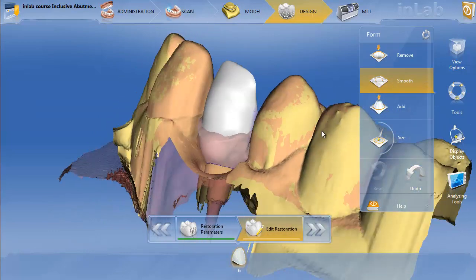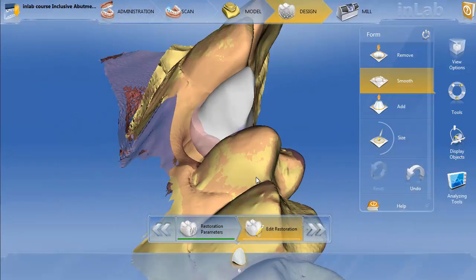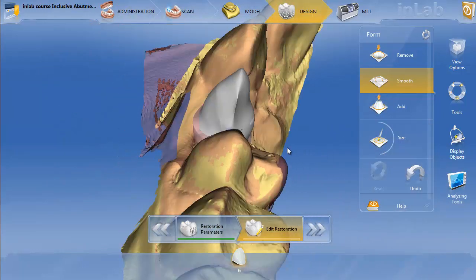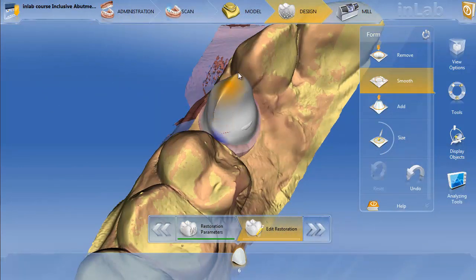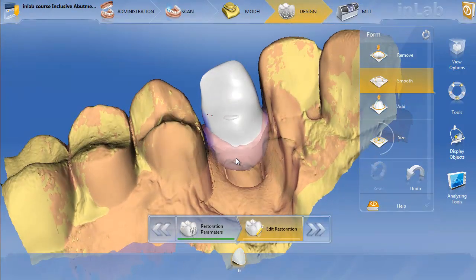You just mill that out as an Emax abutment, bond it to the titanium base, refine the Emax abutment as needed, sharpen the edges, and make sure you're not going to have any over-milling. You'll definitely want to make this a little flatter up here, then re-image and make your final Emax crown over the top. Hopefully that helps give you a strategy on how to make a custom Emax abutment over a Glidewell 6mm titanium base.